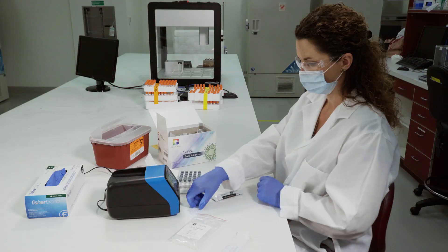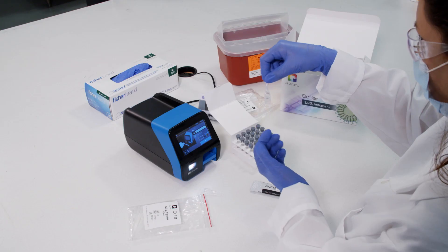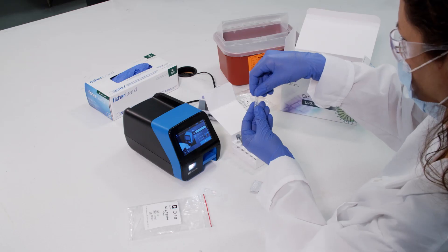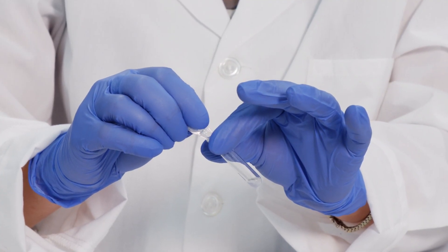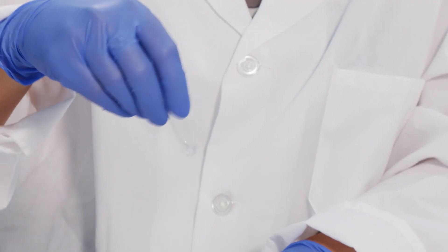To prepare a patient sample from a nasal swab for testing with SOFIA2, flick or shake the reagent solution so that all fluid is in the bottom. Twist off the tab and dispense all of the reagent solution into the reagent tube. Gently swirl the reagent tube to dissolve its contents.